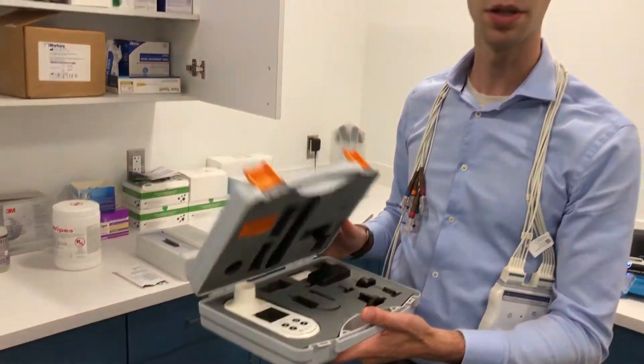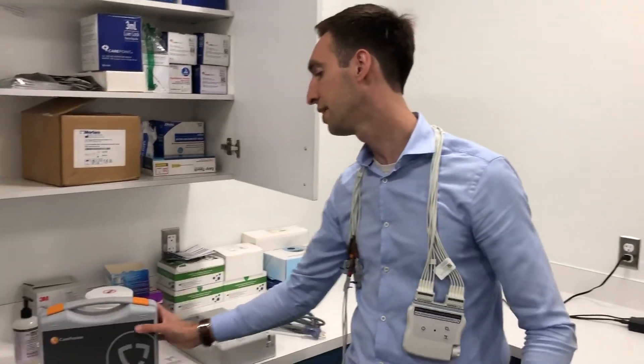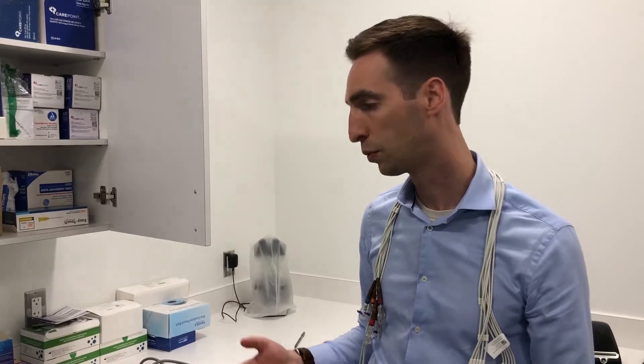The spirometer is about $700 and the EKG machine is about $1,700. Not inexpensive, but if you're buying one and using it once a week for four or five years — even ten years — I've had each of these since I started in late 2016 and they continue to perform really well. I'm really happy with the products.